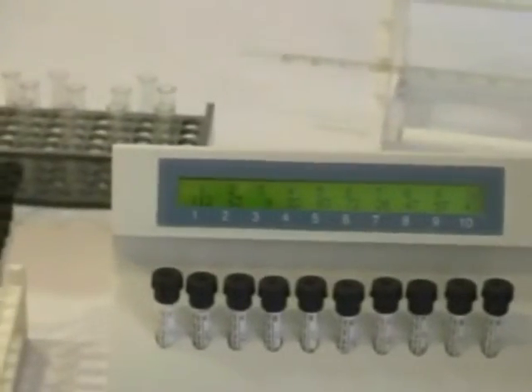Similarly the results of each chamber are also obtained at 30 minutes from the time of its individual run identification on the LCD.